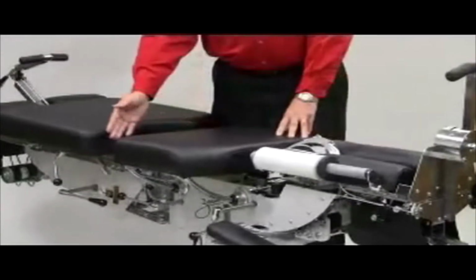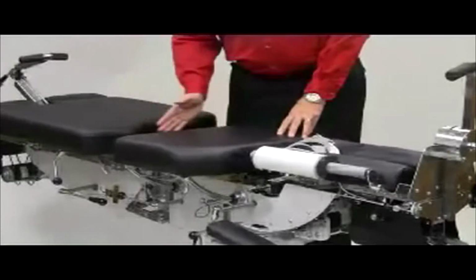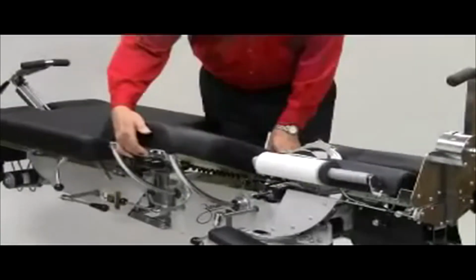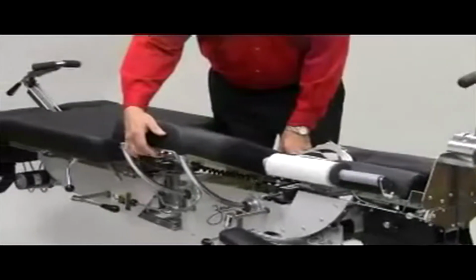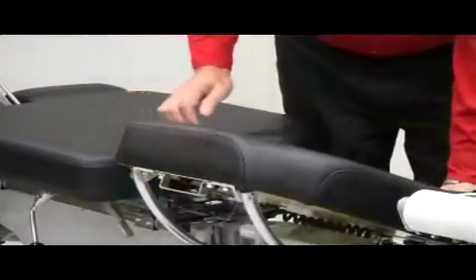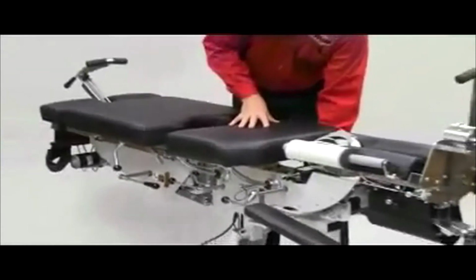It's also available with an optional drop at the caudal edge under the edge of the ilia at this pivot point. And we've also included today the operative touch buttons to raise and lower the table from either side. And then lock it again in any position. And that concludes the thoracic section of the Zenith flexion table.